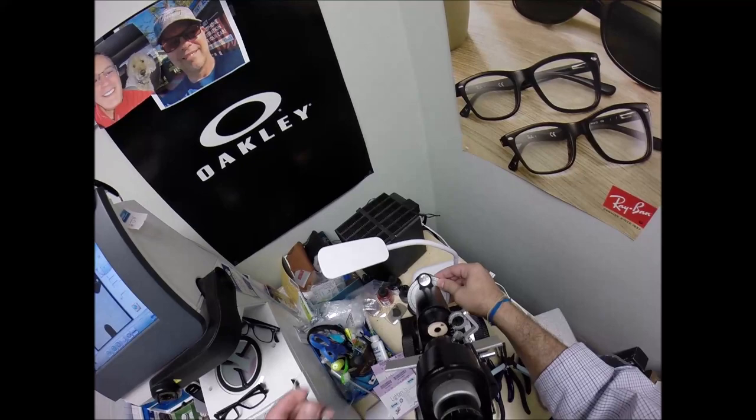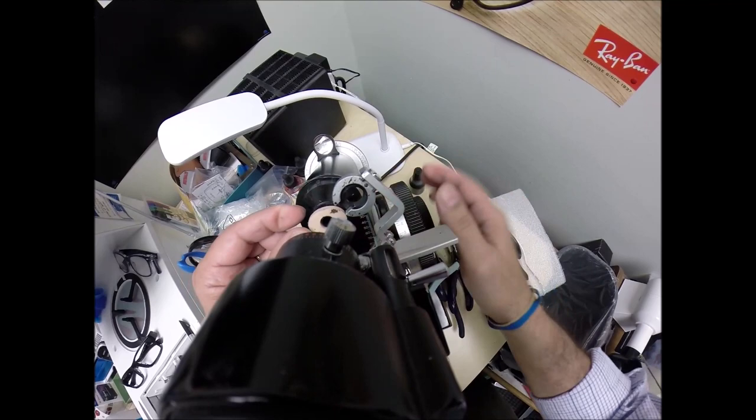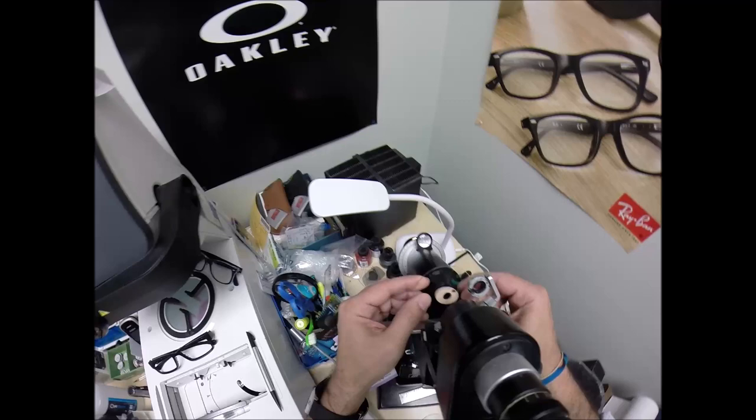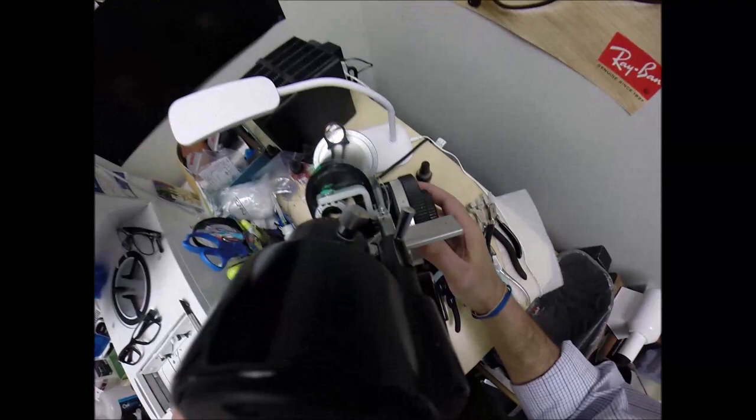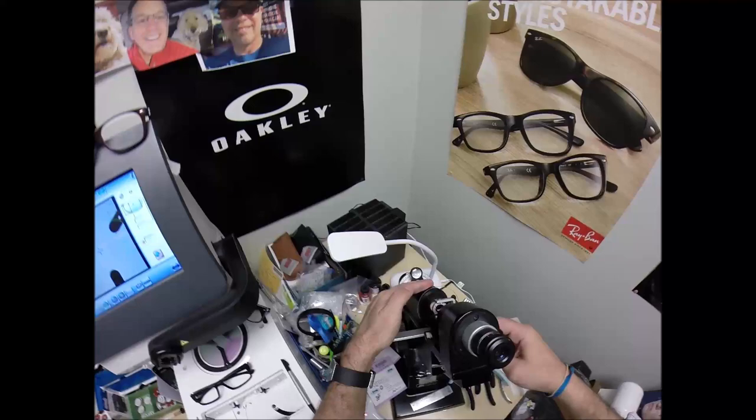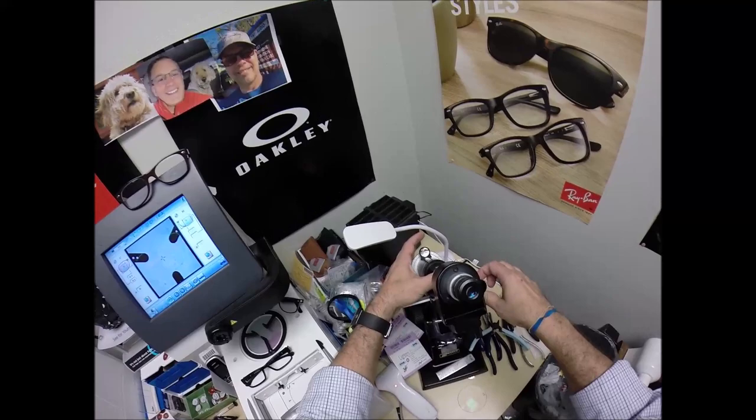Now this one is tough: plus a quarter minus a quarter at 73. This has very little power. So what I need to do, hang on, there we go. Let's move everything in to where it's supposed to be. It's hard to find something that is barely there. That's what she said. Hang on, wait, is this on? Did I think that or did I say it out loud? Hopefully I just thought that, nobody heard that. This is rated PG.